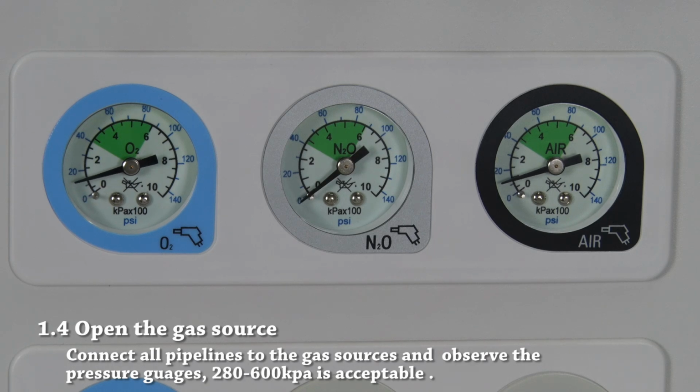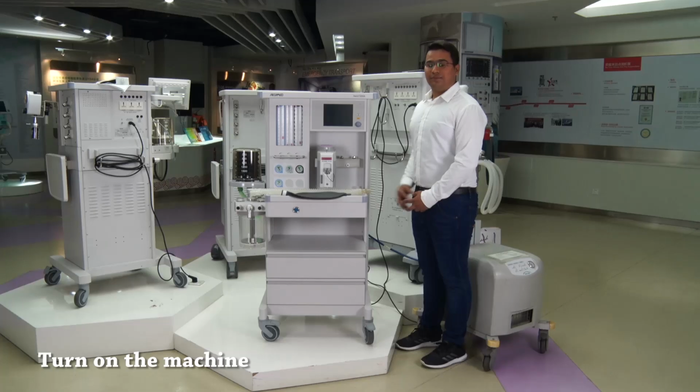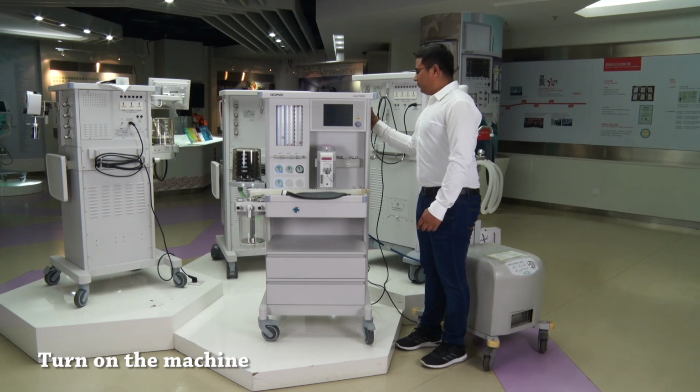Connect all pipelines to the gas sources and observe the pressure gauges. Make sure that the pressure is in acceptable limits between 280 and 600 kilopascals. Part 2. Operation. Turn on the machine.